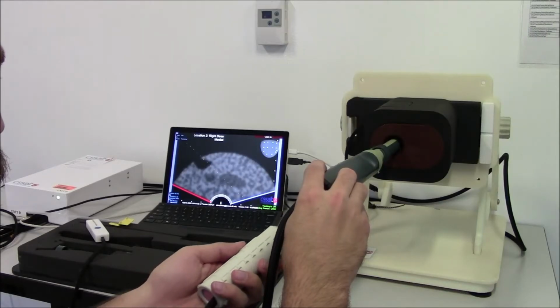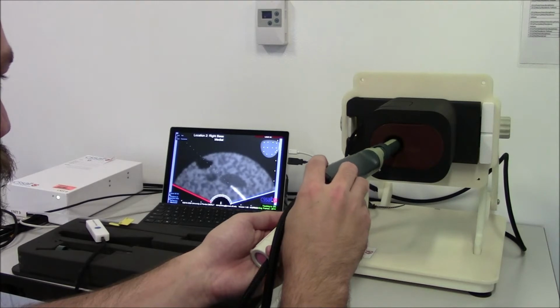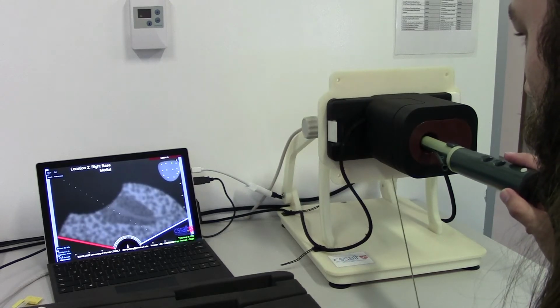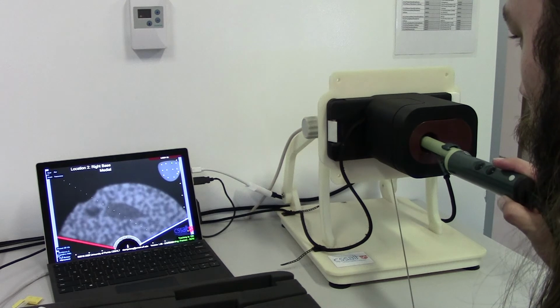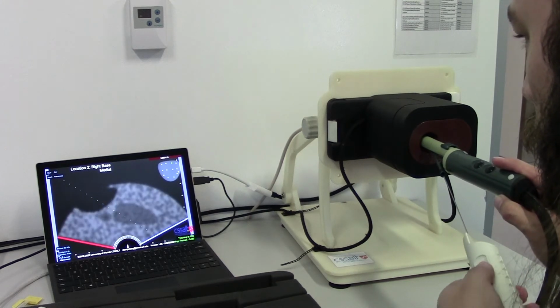The simulator contains an artificial prostate, anus, and rectal cavity, a virtual model and tactile feedback system, a tracking system, and a scoring and after-action review system. A tracked prostate biopsy gun and a tracked TRUS probe with a side fire or end fire guide is used.